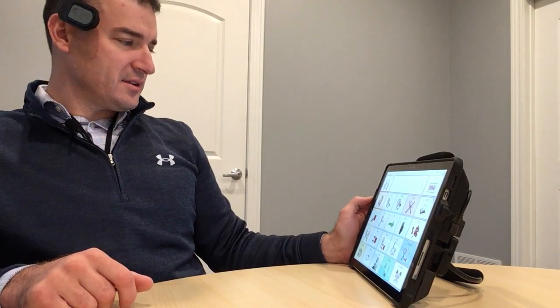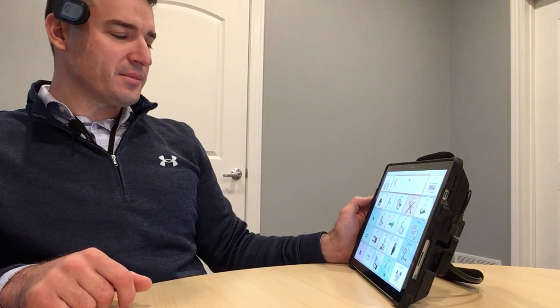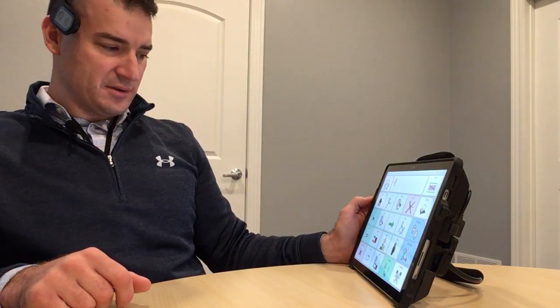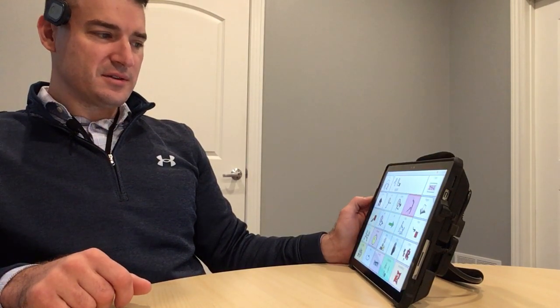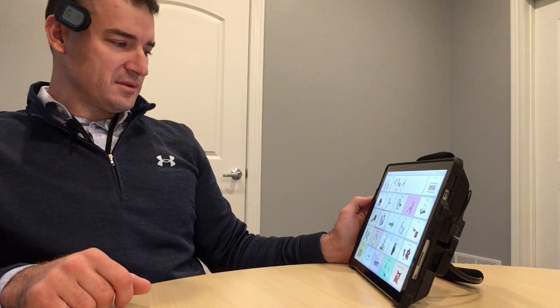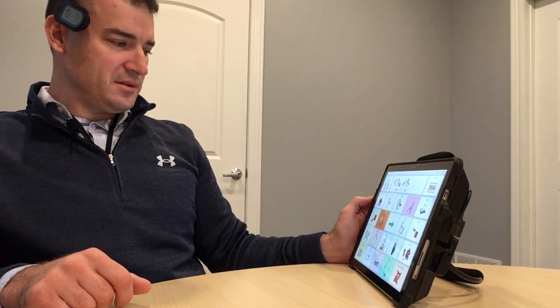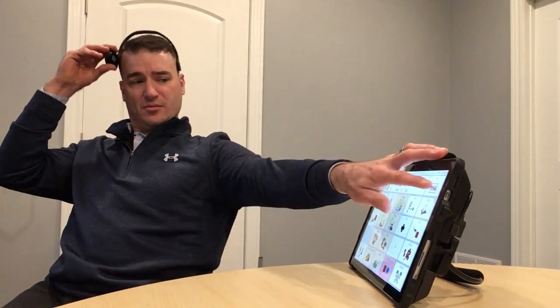I would point, hold it over 'want,' then 'to,' to 'eat' — I want to eat. So that's how you could use the wireless head mouse to access the WinSlate.